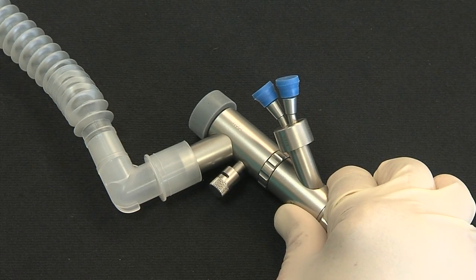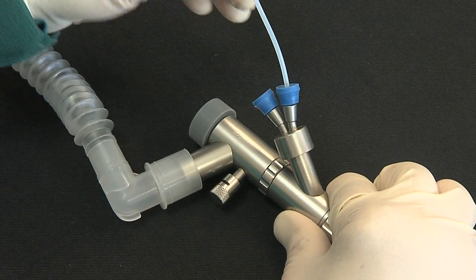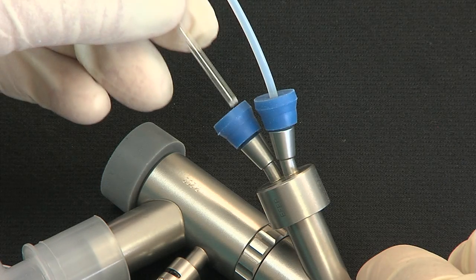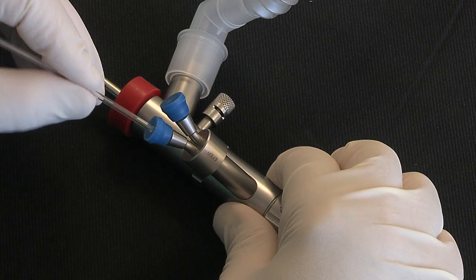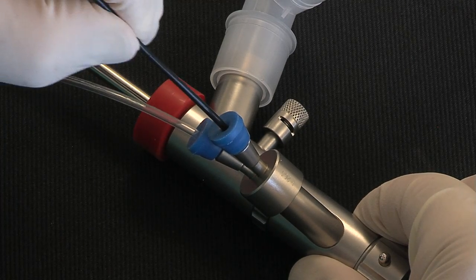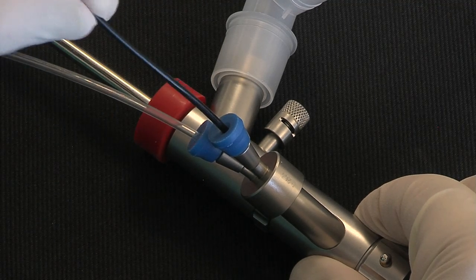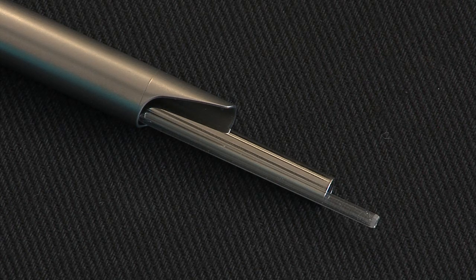Different entry ports are available. Situated on the lower part of the base, an oblique lateral port with two openings: one for a laser fiber and the other for a suction catheter. The lateral obturator is removable to allow extraction of large fragments using a suction catheter. The laser fiber can be replaced by a thermocoagulator or an argon plasma coagulation probe. It is important that all instrumentation is free to move in the Bronchoscope tube and that it can be moved independently.